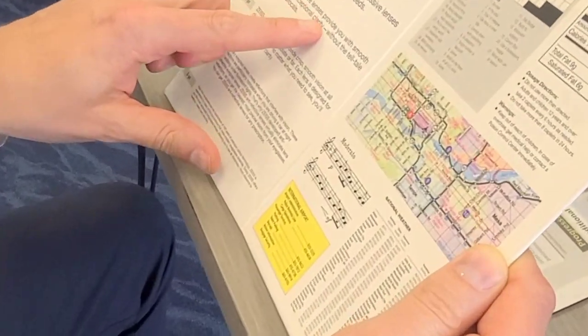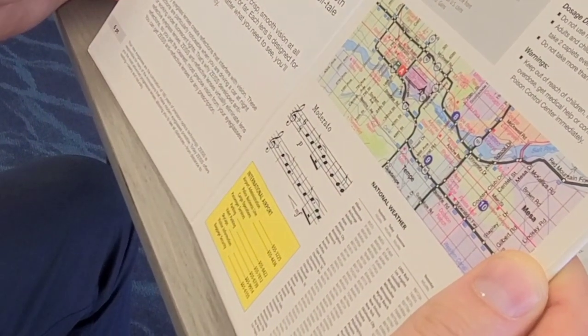So for your reading — reading is very individual, however you want to say it. For some people, they like to have their chin to their chest; you kind of have to play with the position a little bit for what's comfortable for you. Once it's comfortable, begin where your reading will start, just like when you're on the computer. When it's in that sweet spot, it's nice and clear — pick up your reading. Just as before with intermediate and distance, you'll be able to move just your eyes so far right, and you'll know when to turn your chin a little bit to the right. It helps you to understand the channel of vision and how large your reading area is.